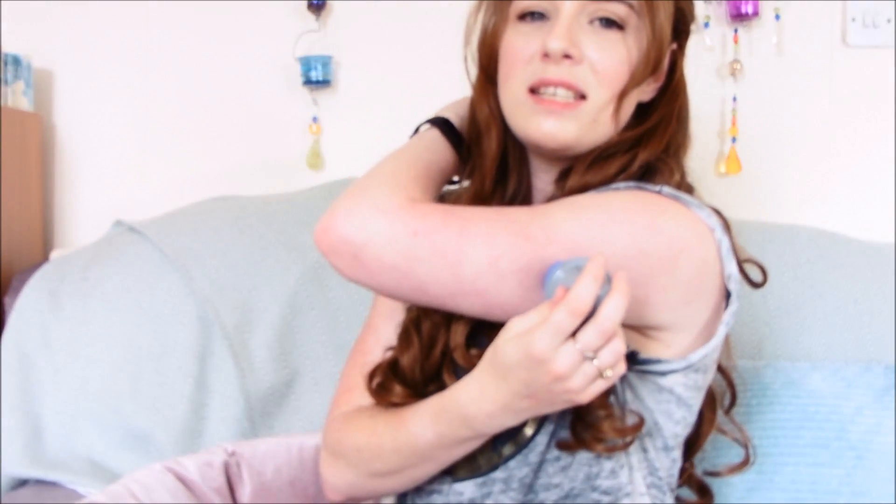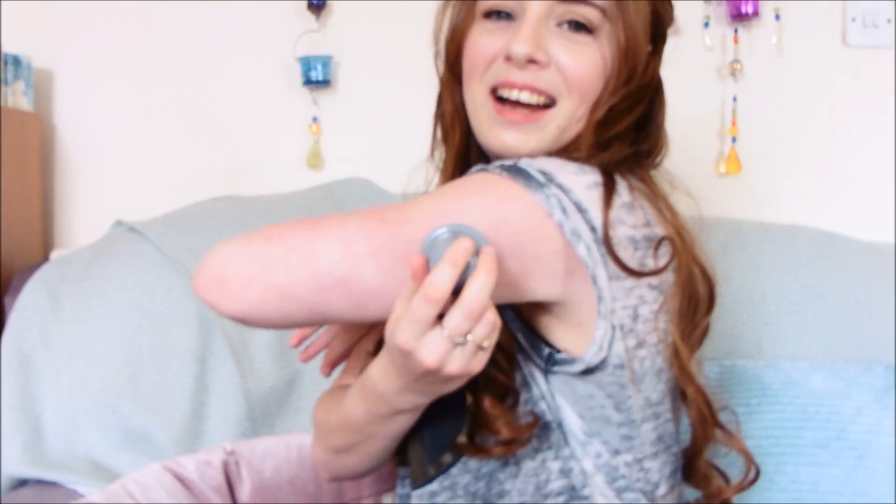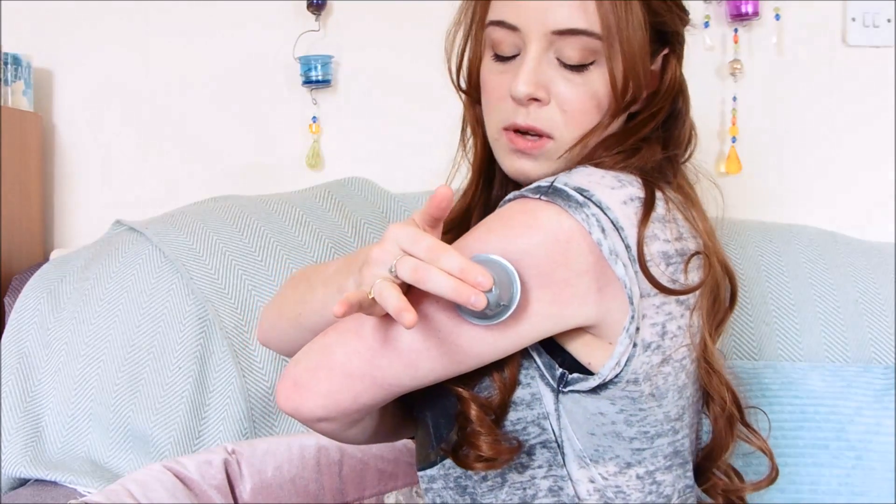So people tend to go like this — I just go this way. Let's shake things up a bit and go this way. All you do is decide on where you want to put it and then you push the grey bit down. I can honestly say I've never felt any pain from doing this — this might be the first time you might find me screaming. All you do is push down. Oh my god — no, it didn't hurt at all. I leave it for a few seconds; I'm sure it says in the instructions to leave it for a few seconds, just waiting for the adhesive bit to stick.